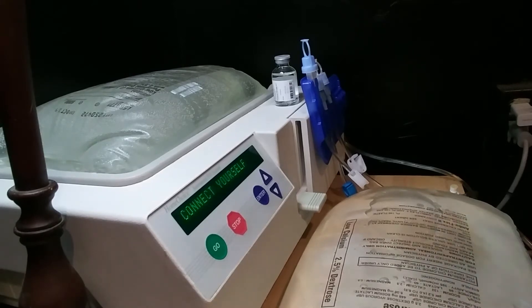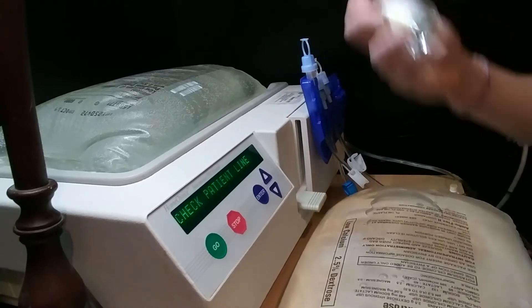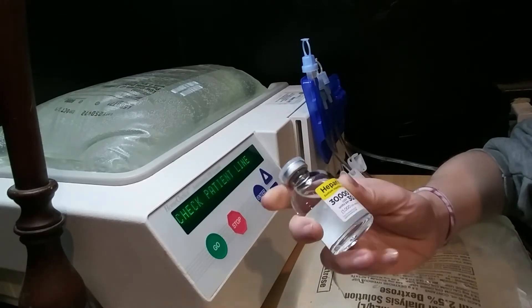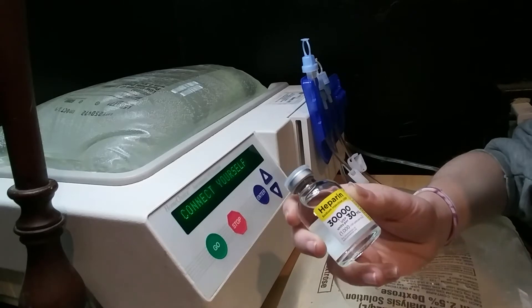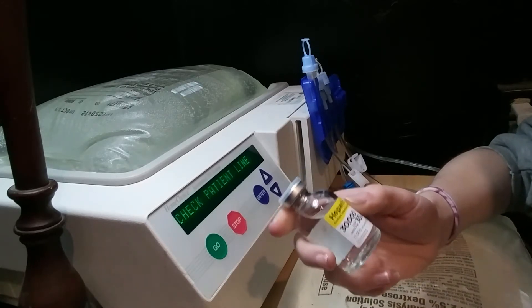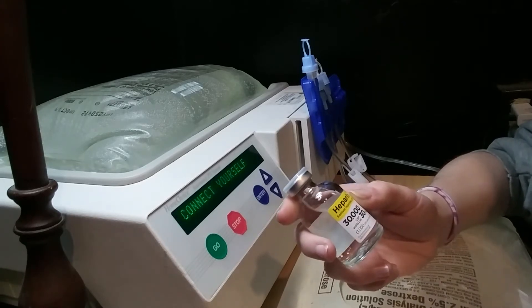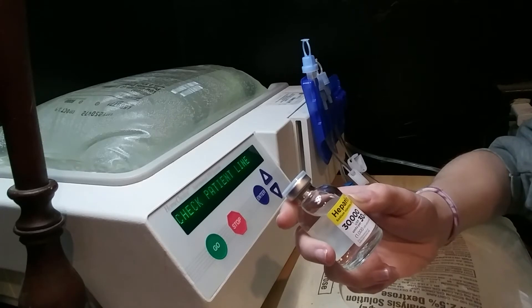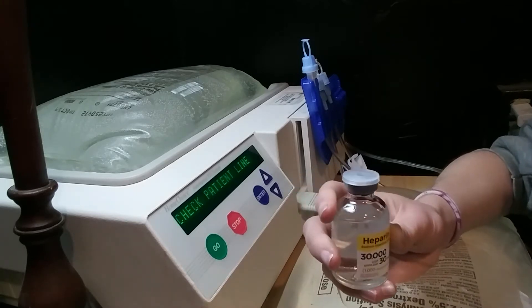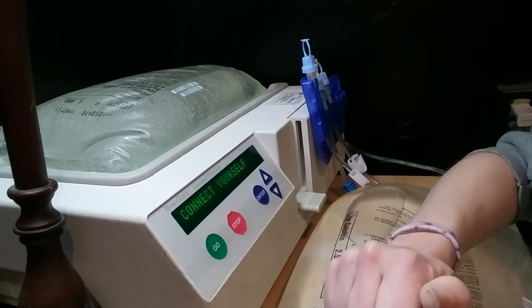I'm going to be adding heparin into the bags. Heparin is a blood thinner — it's an injection. This is going to be something specific to each patient; not everybody is going to be the same with this. They inject it in the bags, and what it does is when it's in your body, it prevents things from building up and resulting in blockages in your tube. It keeps your draining smooth and quick.